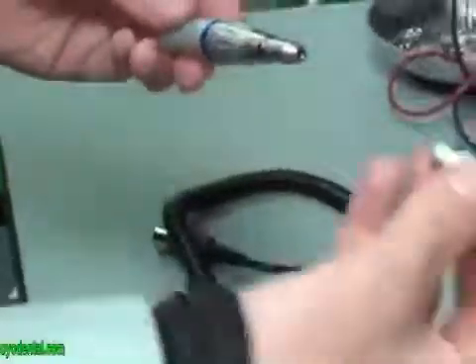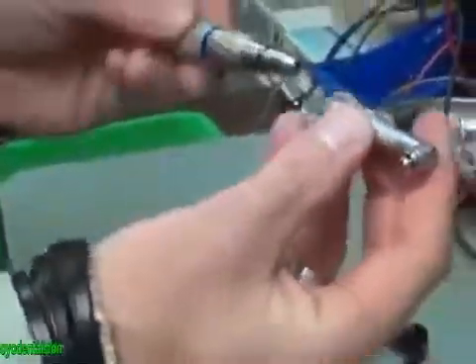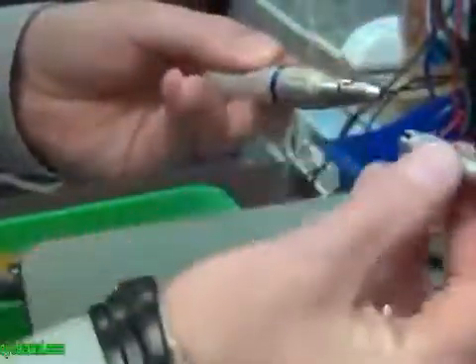Now with it still in the unlocked position, you want to take the profi head and make sure that you match up this groove with this divot right here.